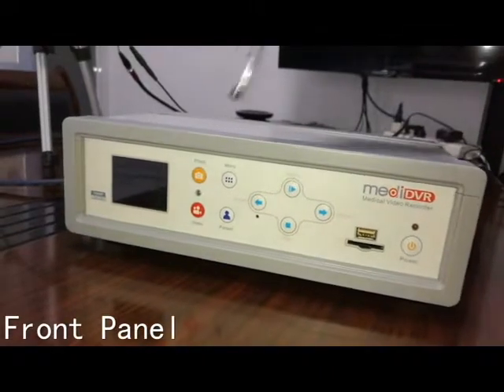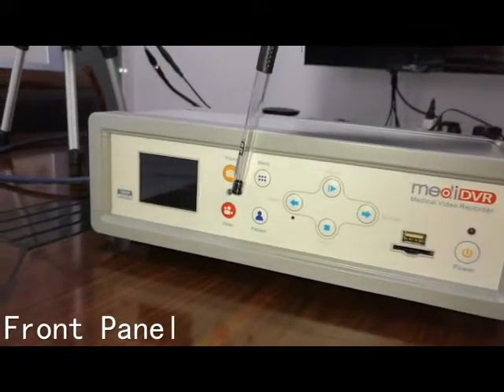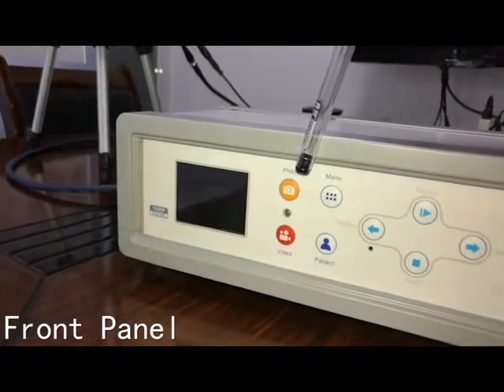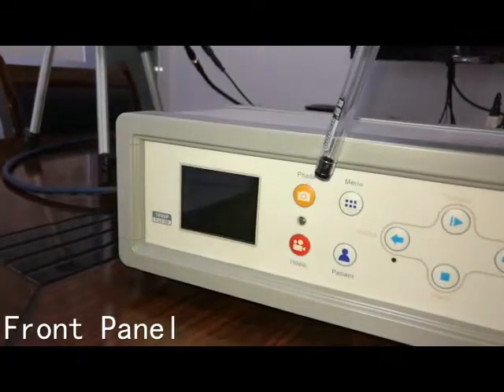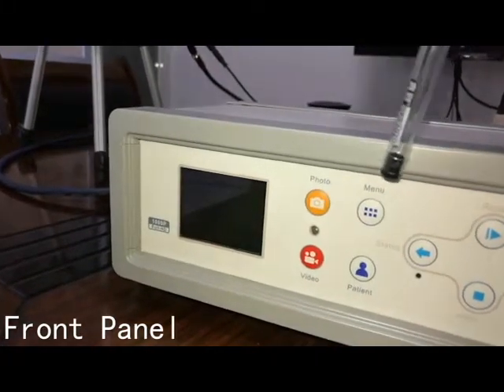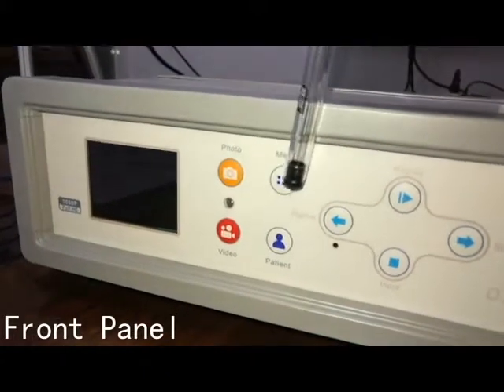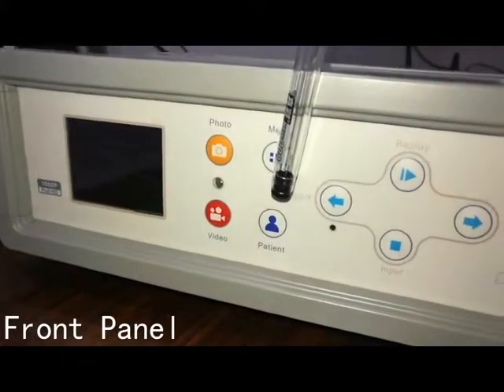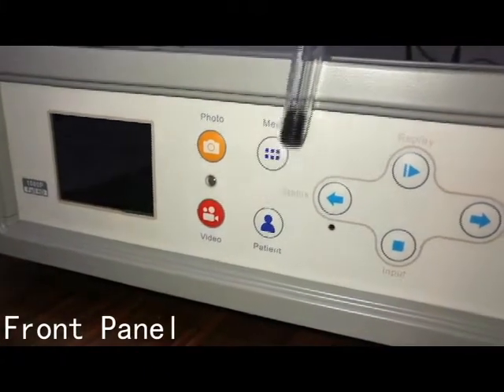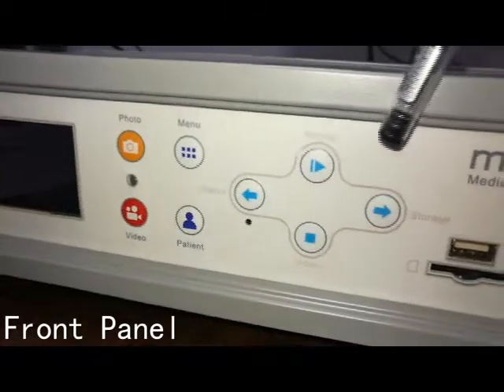The video button is used for starting a record and the photo button is used for taking a photo. Press the menu button to go to the settings. Press the patient button and you can edit information of patients.